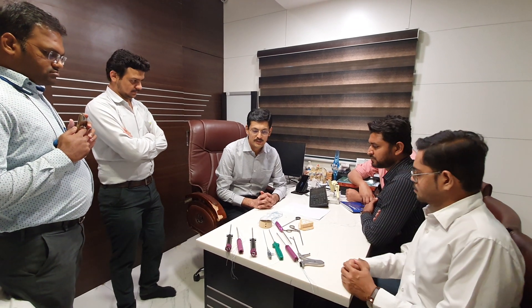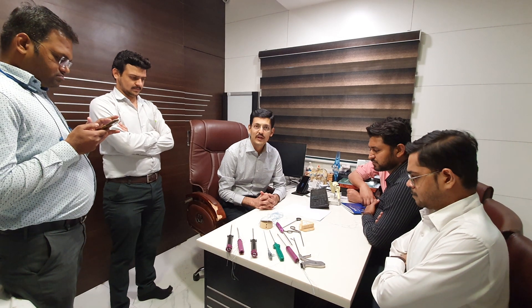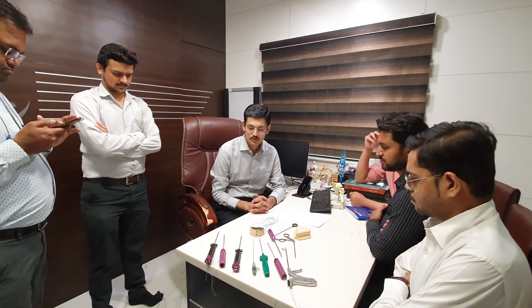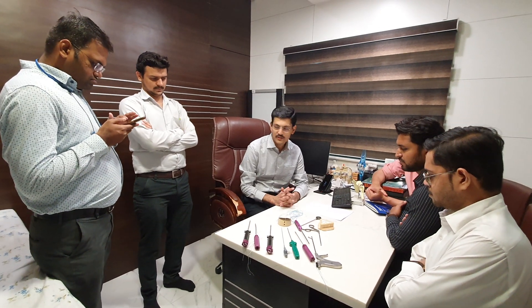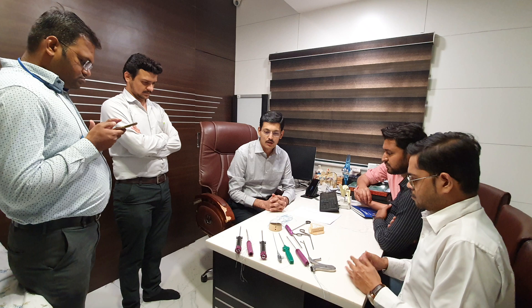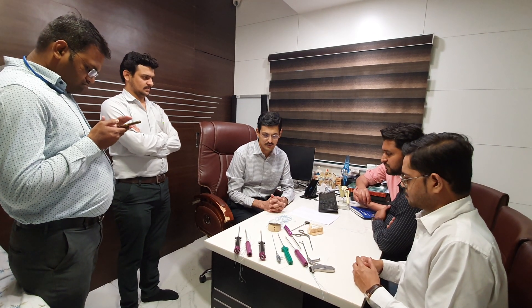Good morning. Today we will be doing a workshop on anchor insertion, covering different types of anchors and their use. This is a very useful class specifically for beginners who want to learn and venture into shoulder repairs, be it instability or rotator cuff repairs.